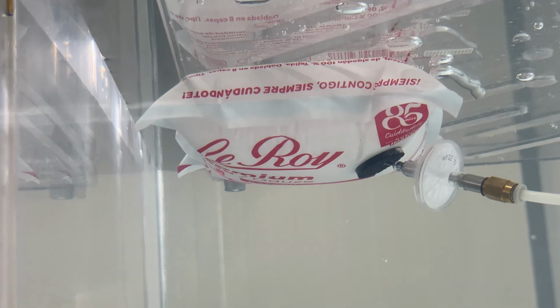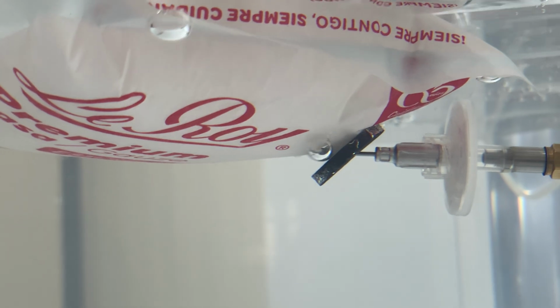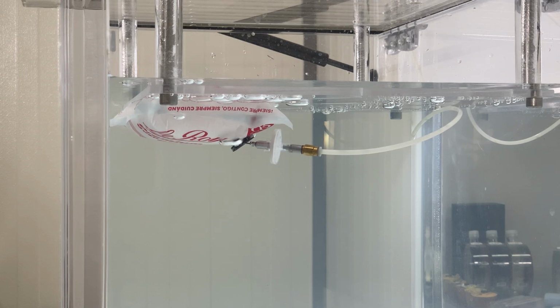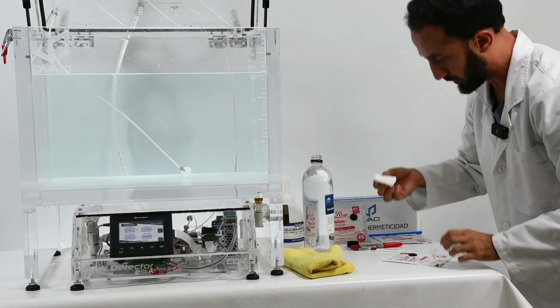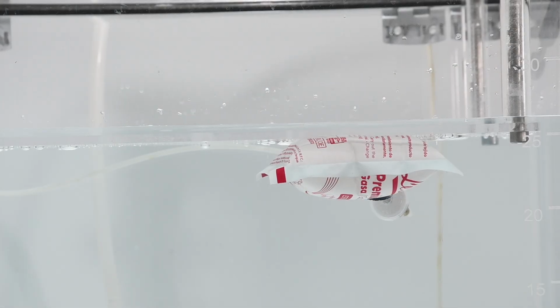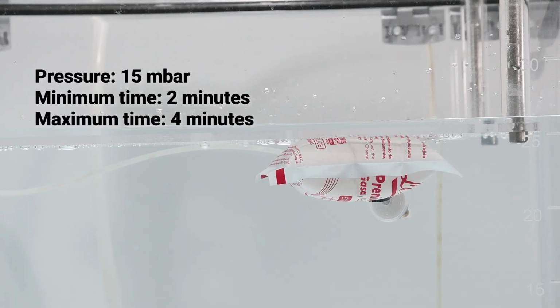As a practical recommendation, glycerin is a greasy substance, which prevents the patch from sticking during the internal pressurization test. That's why it's recommended to place the patch before applying the glycerin. Additionally, in the tests carried out with the gauze, we determined that they should be performed at a pressure of 15 millibars for a minimum of 2 minutes and a maximum of 4 minutes.